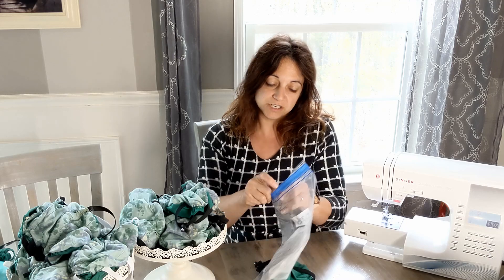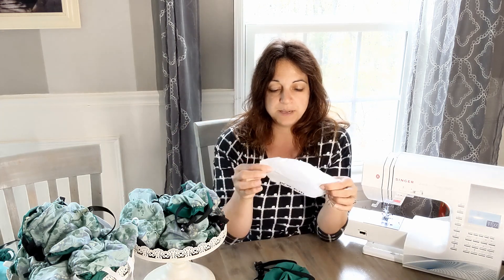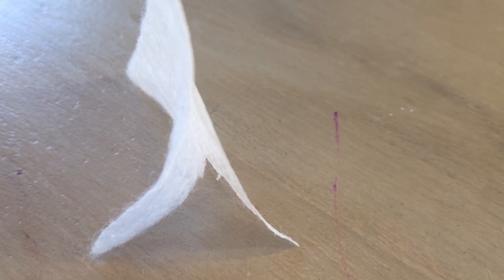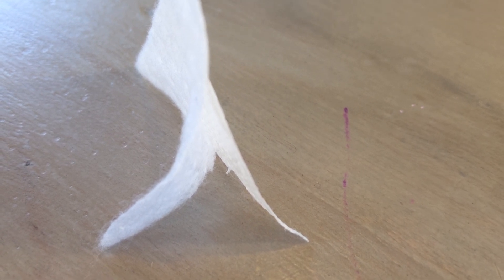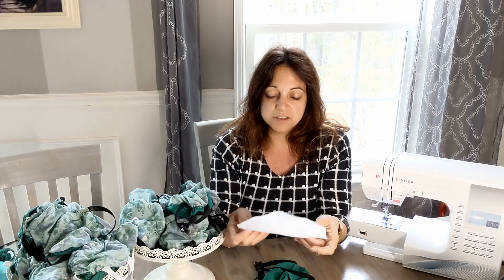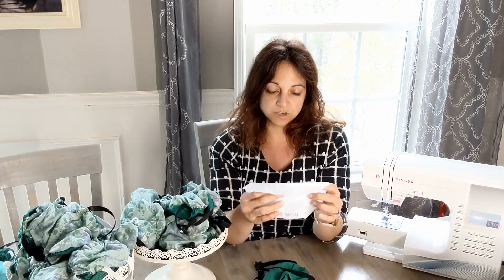With this mask, I found out about a new filter material called Filty, which was designed to be used for DIY face masks. This material kind of looks like a paper towel — it's very thin and has three layers: a polypropylene layer on the outside which is the shiny layer, a nanofiber layer that you cannot see, and on the inside a fuzzy layer which is the dust-catcher area. On the Filty mask, the healthcare worker side is the shiny side; on the 3M filter, the healthcare worker side is the fuzzy side.